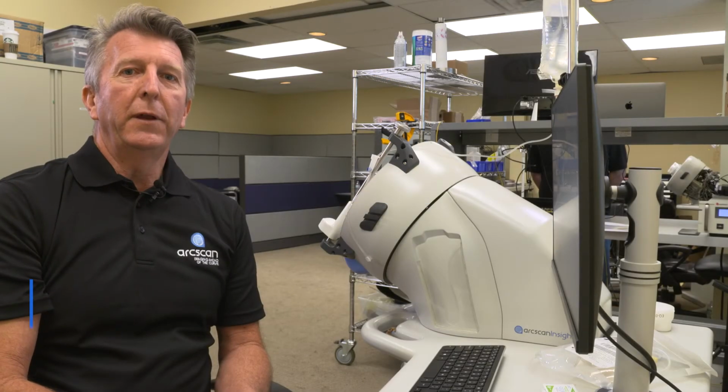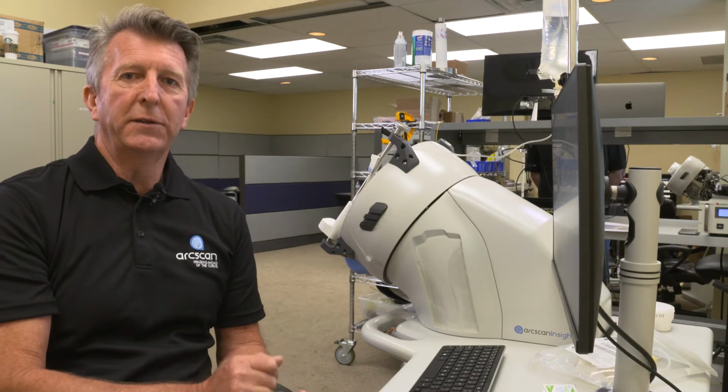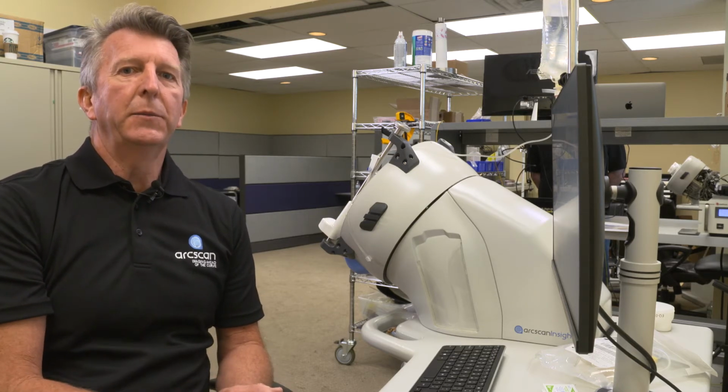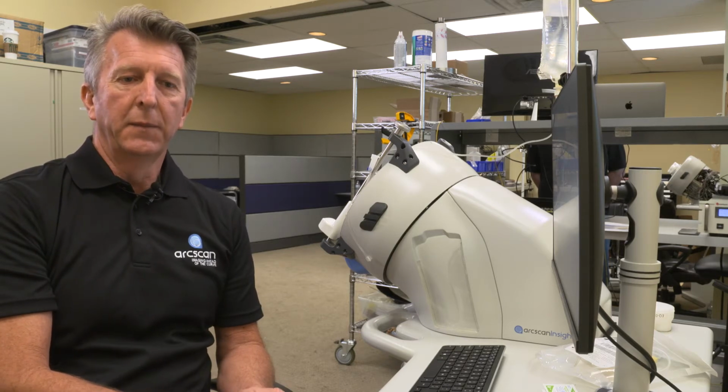Hi, I'd like to go through the Insight 100 user screen so that we can identify to you the various options that you have as an operator: entering patient demographic data, checking the water level in the instrument, and a few of the commonly used tools that are on the instrument screen.